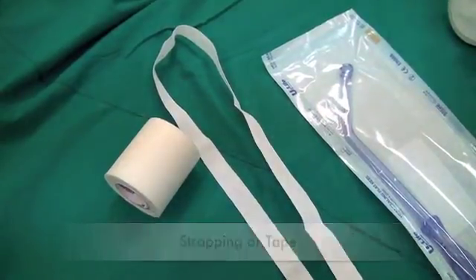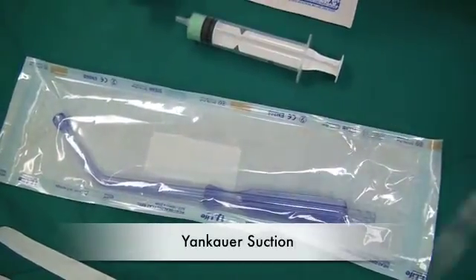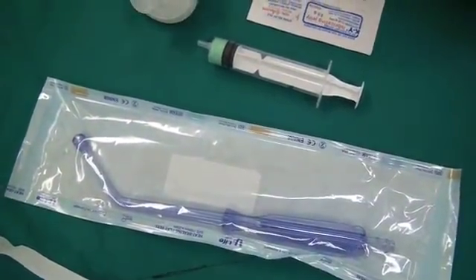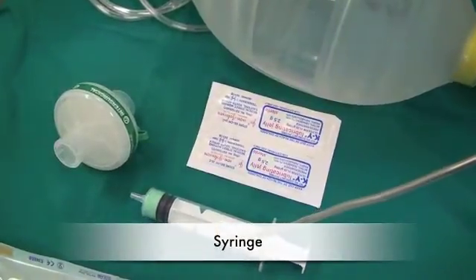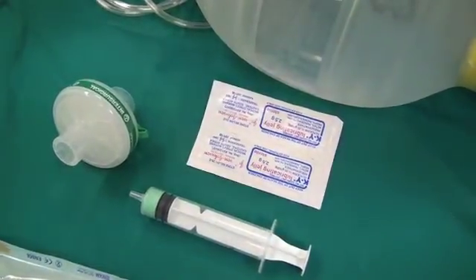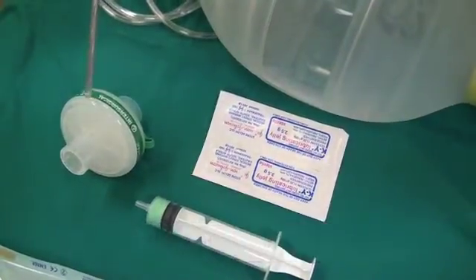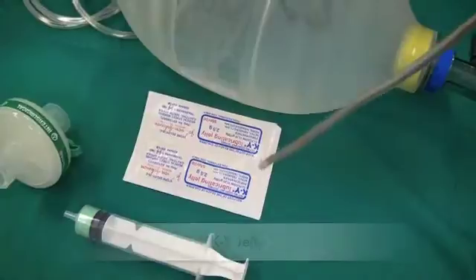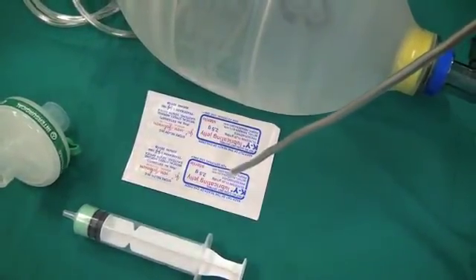Strapping or tape is used to secure the endotracheal tube. The rigid Yankauer suction is used to suction the airway at intubation or at emergence. The syringe is used to inflate the cuff of the endotracheal tube. The HME filter is used to prevent heat loss and moisture loss from the airway. The KY Jelly is used to lubricate all airway equipment entering the mouth. It is essential to have an ambu bag in your theatre should you have problems with your airway equipment or your anesthetic machine.